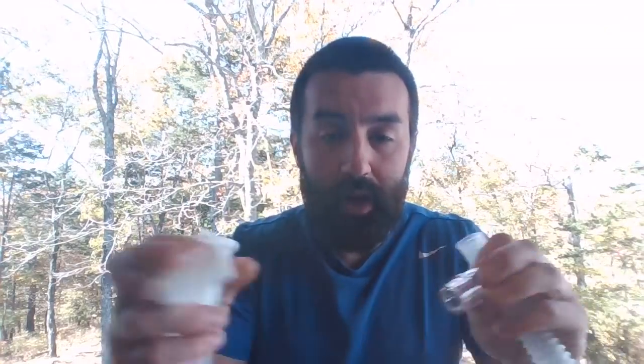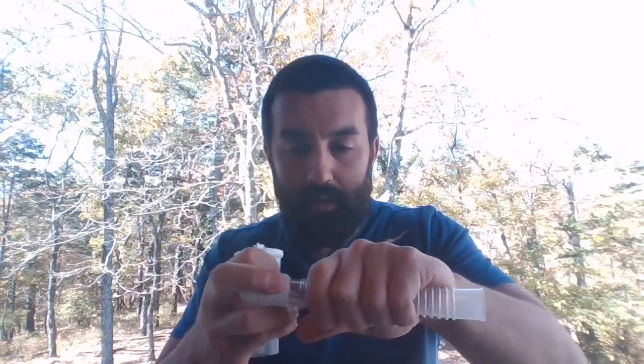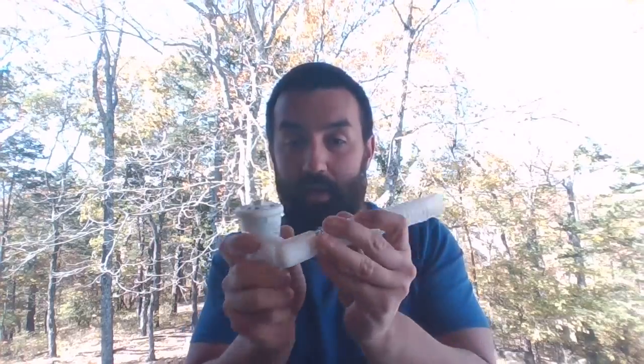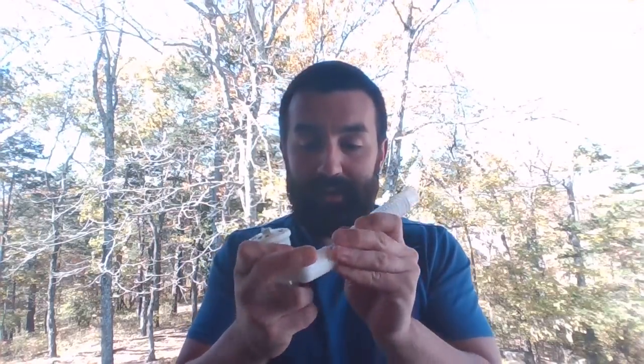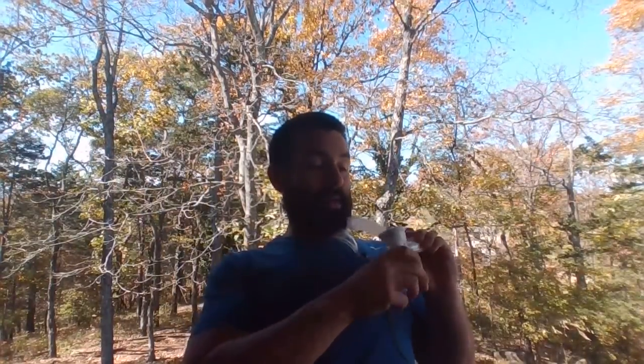So I got my band elbow in. I can put this piece in. And now, man, I can really customize the angle. I can have all sorts of movement on this thing, and it stays put a little bit better. And I can have it like this, sitting here. They can still hold it, but if they can't, I can manipulate this thing to be sitting upright because that band elbow gives me the ability to turn. I can turn like this. I can do all sorts of stuff.